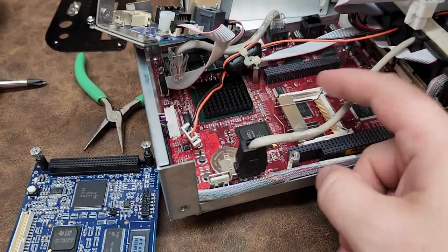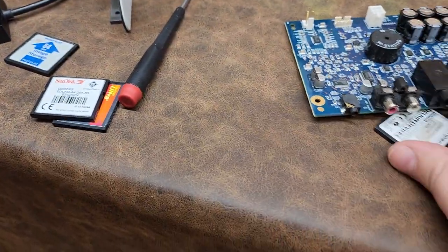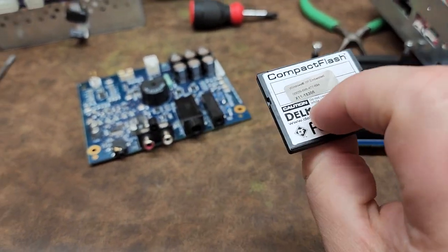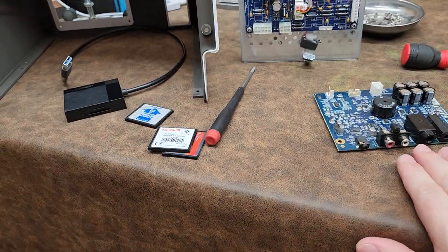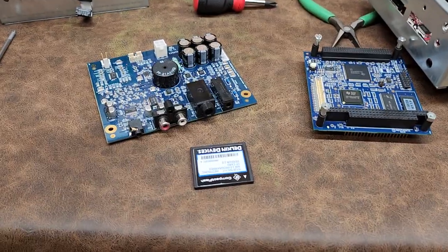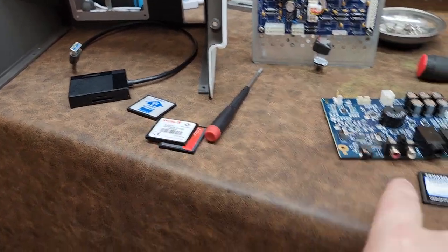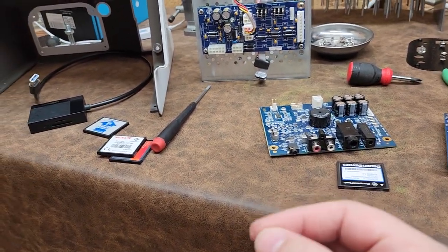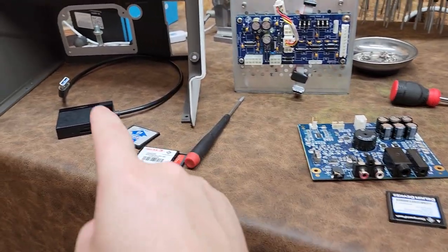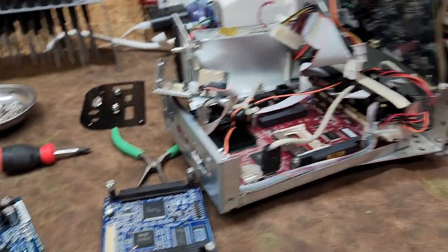Once I've done that I'm going to boot it up. First I'm going to make a copy of the Compact Flash right here for archival reasons — same flash card, I usually keep copies. I keep copies of all sorts of medical devices because you never know when you need certain driver files or need to partially rebuild a directory structure. I always keep archives of various devices, especially if they have removable flash.